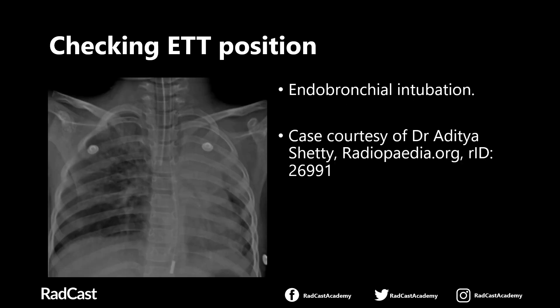The reason you don't want your endotracheal tube to be too low is that it can go beyond the carina and into the right or left main bronchus — that's called endobronchial intubation. When that happens, you only supply one lung with air and the other lung collapses. In this example, the endotracheal tube has gone down too far into the right main bronchus, so only the right lung is ventilated and the left lung has collapsed. This is an emergency — you'd call the team immediately so they can withdraw the endotracheal tube to the ideal five to seven centimetres from the carina. You'll also notice on this x-ray that the nasogastric tube tip is only a few centimetres away from the gastroesophageal junction at the diaphragm, so that also needs to be inserted further into the stomach.